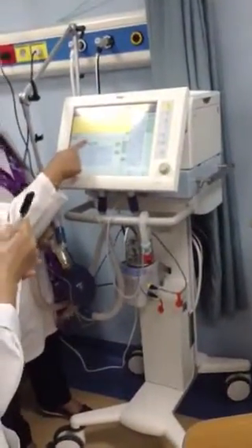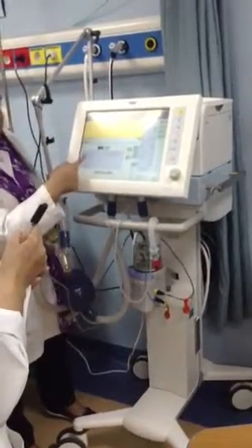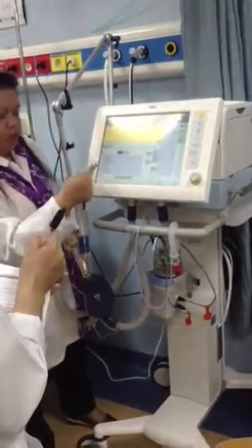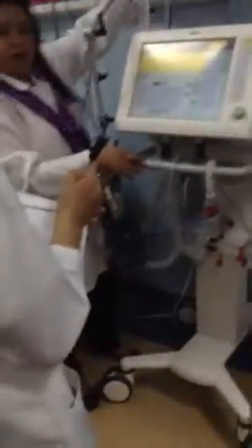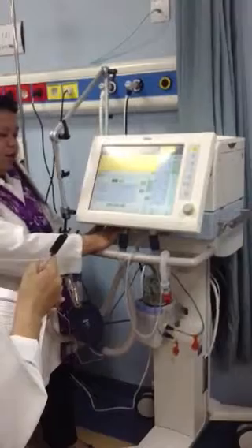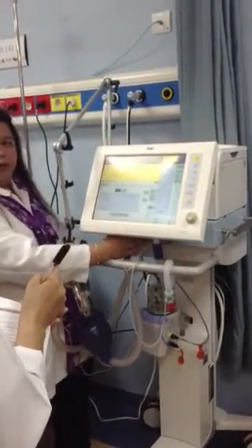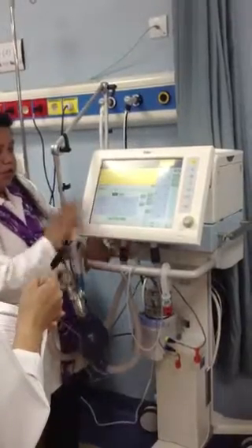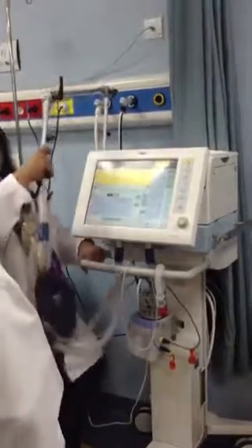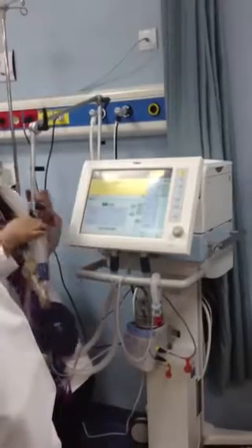If you press this one, check, rotary knob, it will automatically check all the exhalation valve, if it's working, flow sensor, NeoFlow, humidification function, air, oxygen, switch over valve. You have to remove and connect again the oxygen, the safety valve, and your oxygen sensor is inside your machine. Only the biomed is installing this one. So it calibrates your flow sensor, NeoFlow, oxygen sensor, the alarms, the supply pressure, if it's enough. So that is your device check.